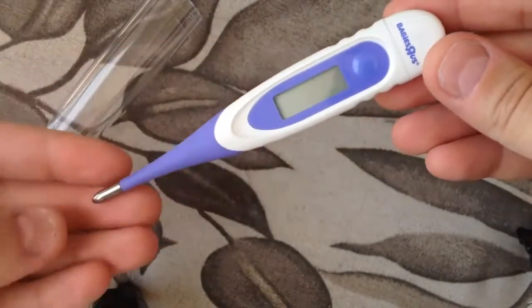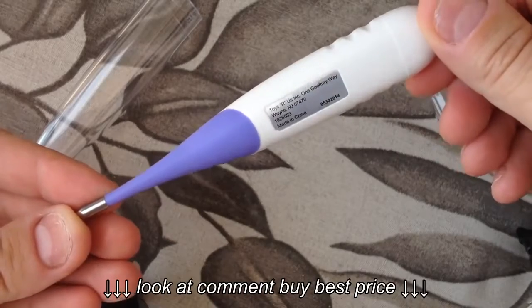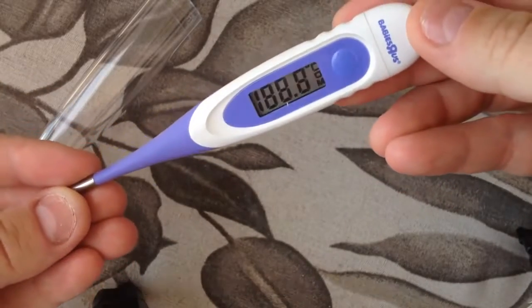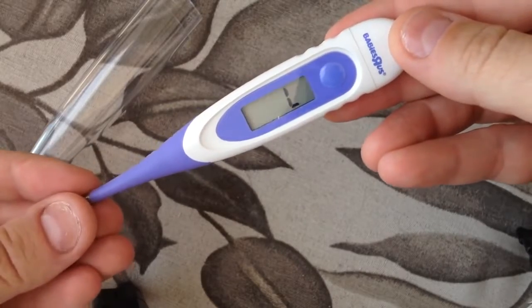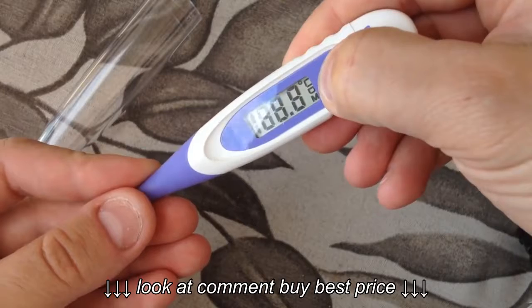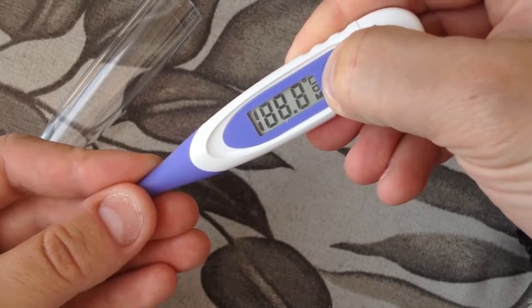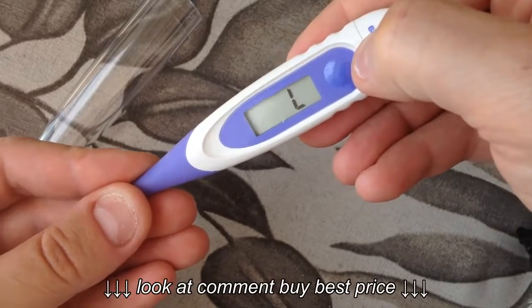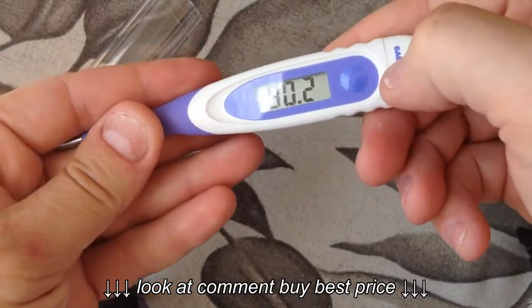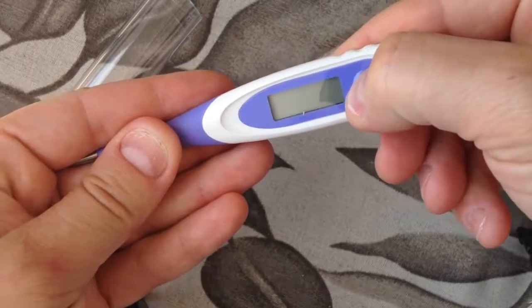It will initialize, and to switch between one unit to another you need to press and hold once it is on this screen. So let's do it again — you turn it on, press again and hold, and it will switch the unit. Now it is in Fahrenheit and it will show the temperatures in Fahrenheit.